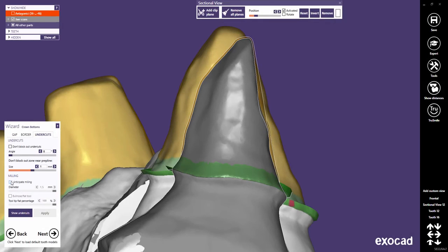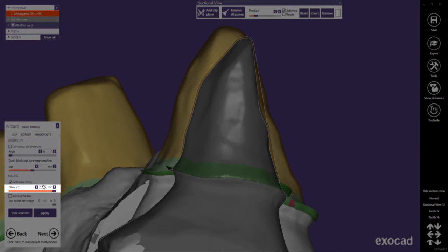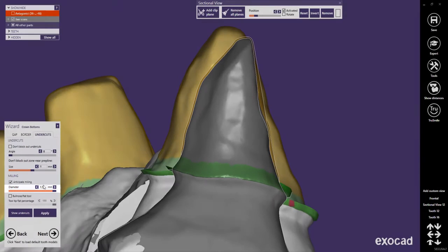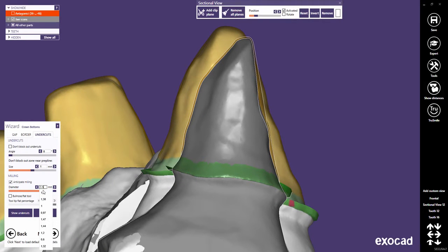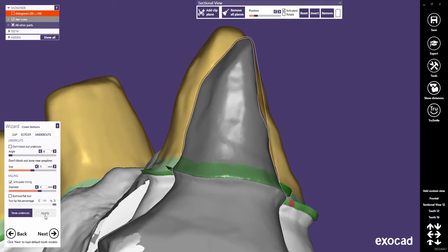Use the Diameter slider to define the diameter of the smallest tool that is used in milling the crown bottom. It is beneficial to choose a value slightly higher than the diameter of the actual tool you are using. For example, choose 1.2 mm when milling with a 1 mm tool.